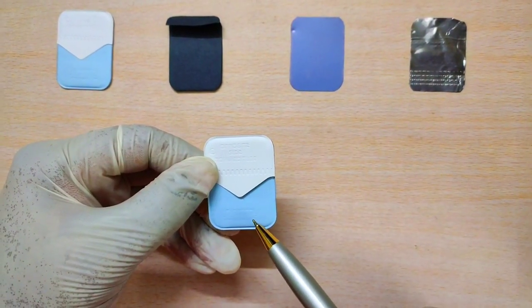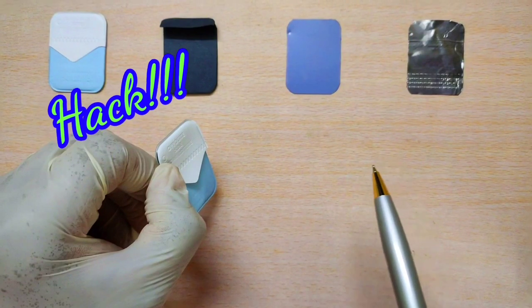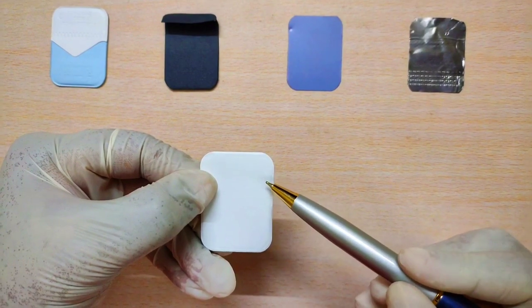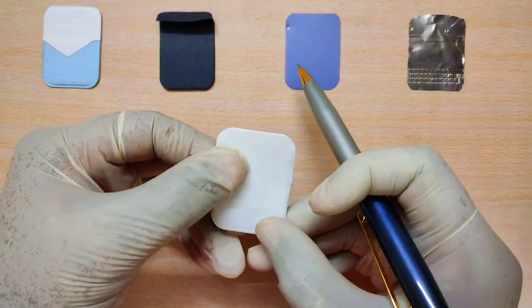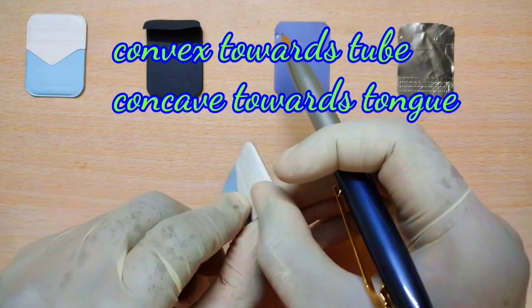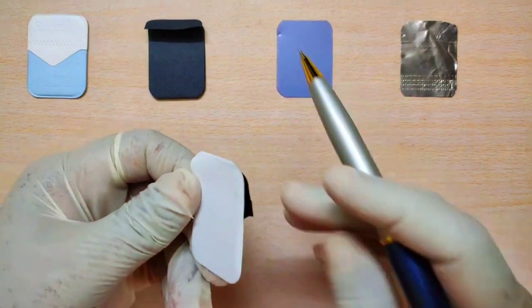An E-speed or Ektaspeed film is used here as it is superior from a diagnostic point of view. Here is a hack: can you see the tongue-like flap on the label side? Make sure this is always facing the tongue of the patient — by doing this, you won't go wrong with film placement while making a radiograph. On the tube side, in the corner of the outer plastic wrapper, there is a small raised dot called the embossing dot. This is used for film orientation — to find out which quadrant or anatomical location the radiograph belongs to. The convex surface of this dot should always face the x-ray tube and the concave surface toward the patient's tongue. The outer plastic wrapping is a waterproof material, protecting the film from moisture and saliva.